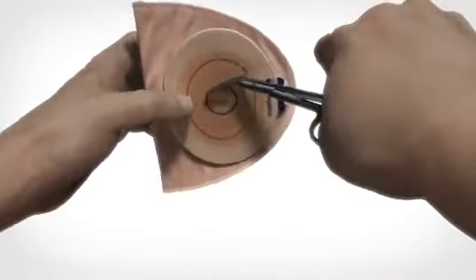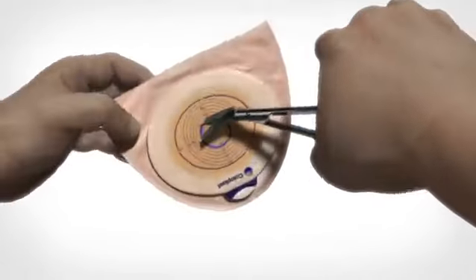When you remove the protective film, you can save it as a guide for the next time you prepare your own adhesive.